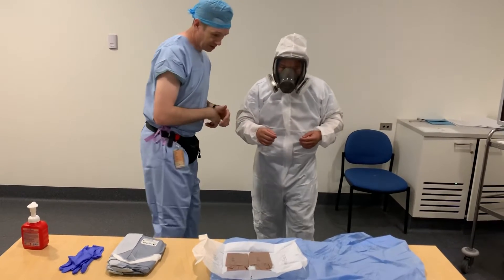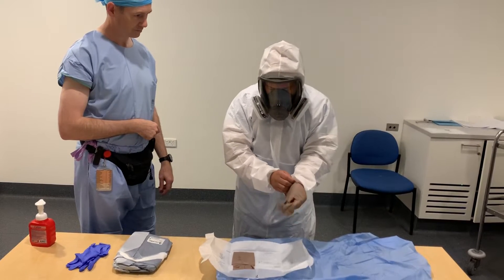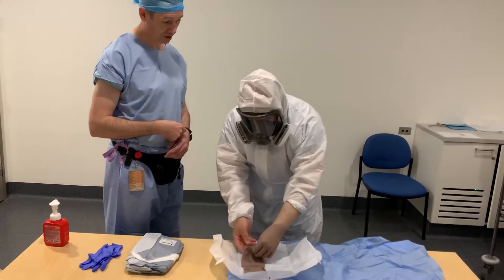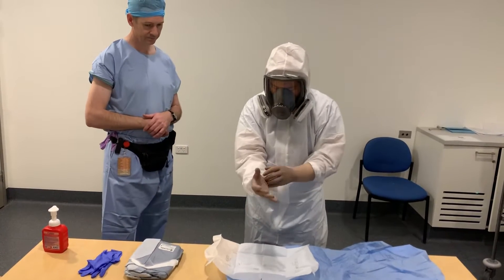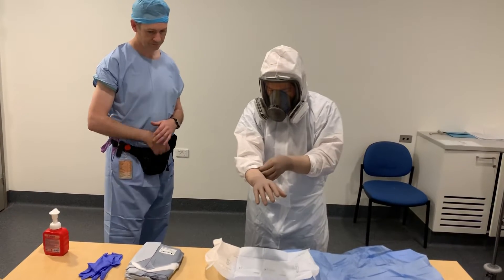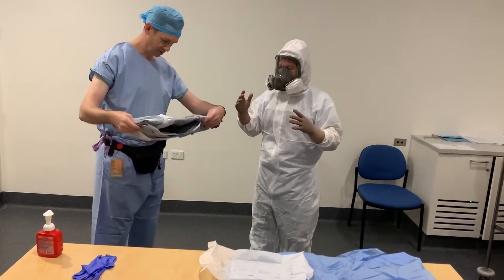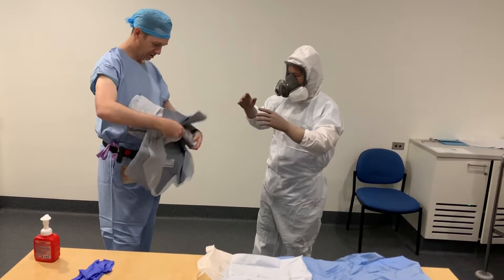The next phase is sterile surgical gloves. Ensure that they go as far up your coverall as you can. We're using surgical gowns, but if you haven't got surgical gowns you can also use the routine gowns that you have.